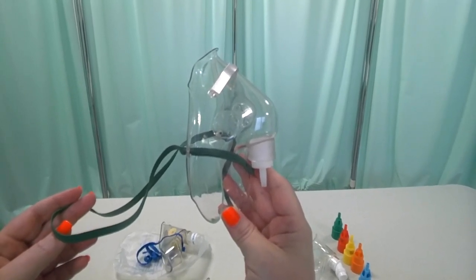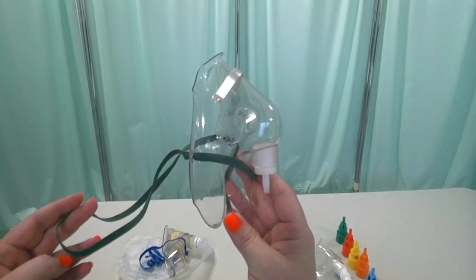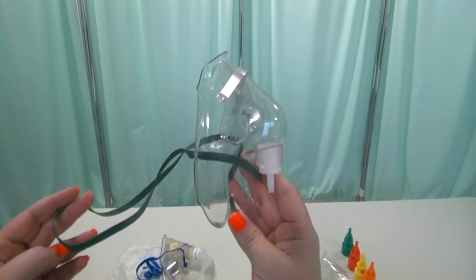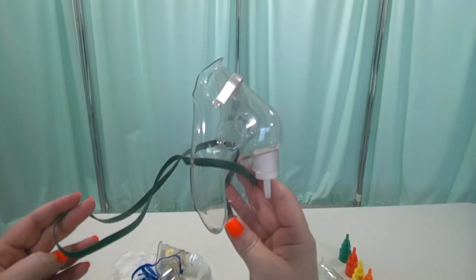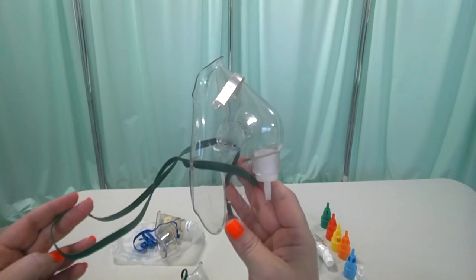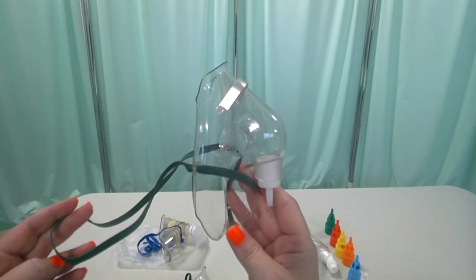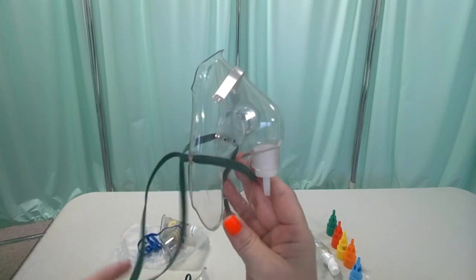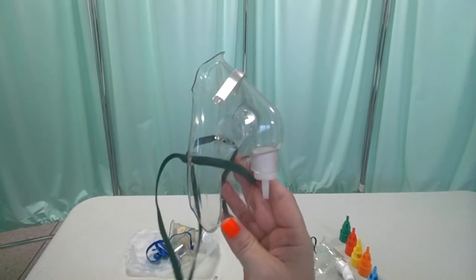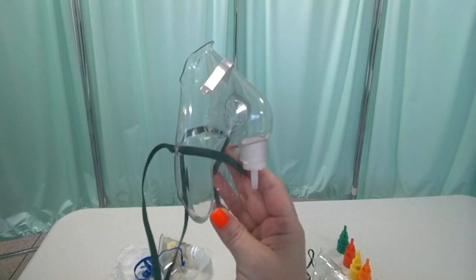Around the 5 to 6 liter per minute mark, we're going to be delivering to our patient around 40% concentration of oxygen. It's for those who are moderately hypoxic, and it does deliver quite a significant percentage when you consider room air is 21% — it's about double that.